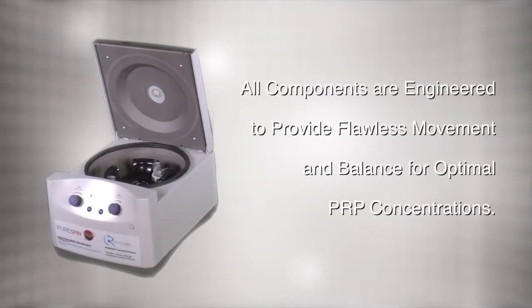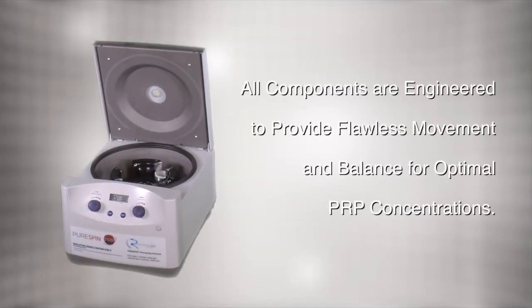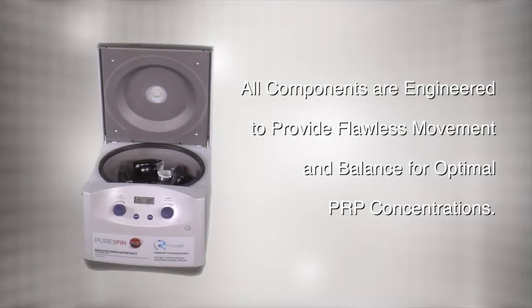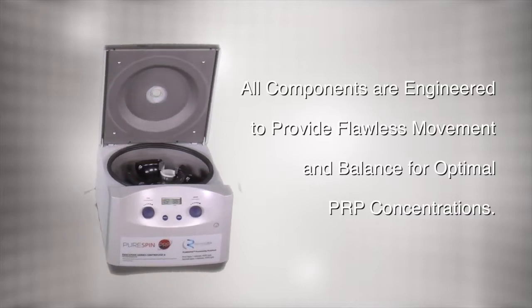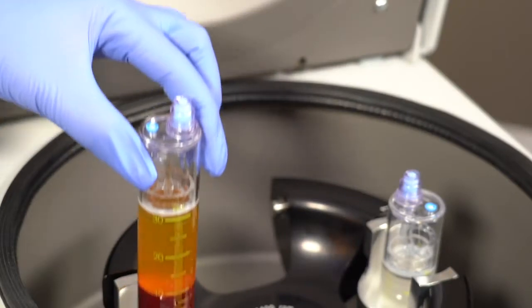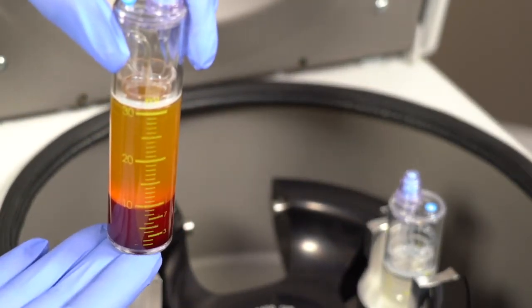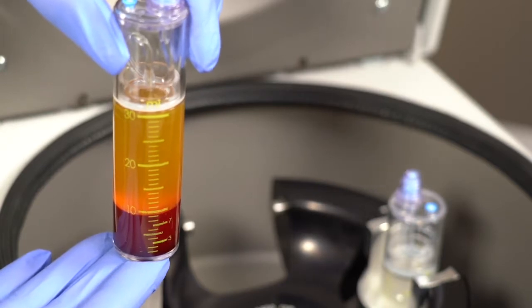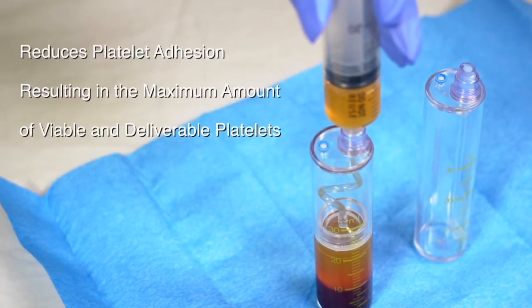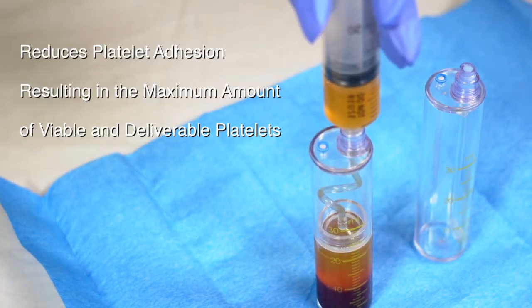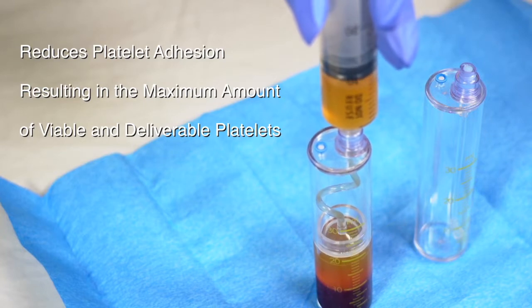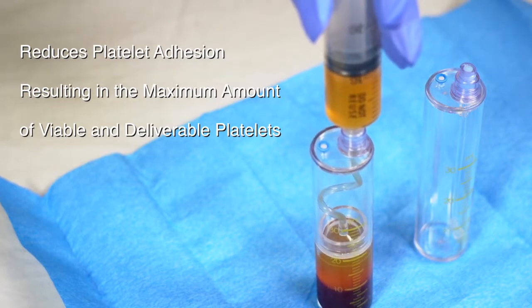All of the PureSpin components are engineered and crafted to provide flawless movement and balance for optimal PRP concentrations. The PureSpin delivers the highest platelet recovery yield, a consistent therapeutic grade of 80%. The uniquely designed system reduces platelet adhesion, resulting in the maximum amount of viable and deliverable platelets.